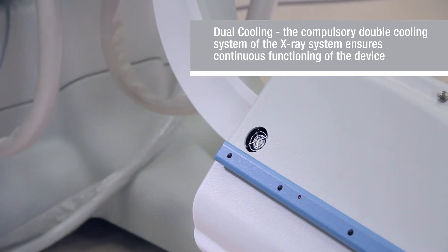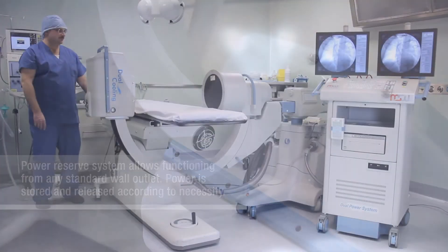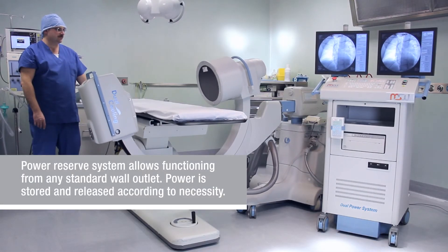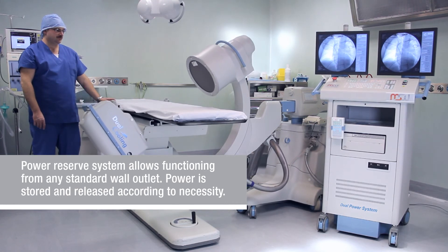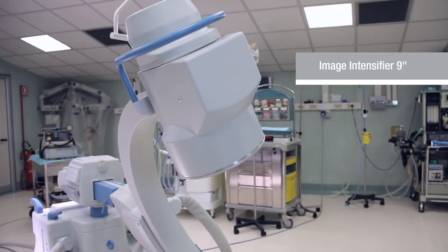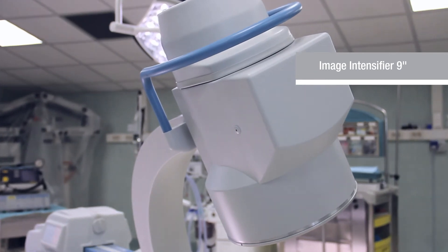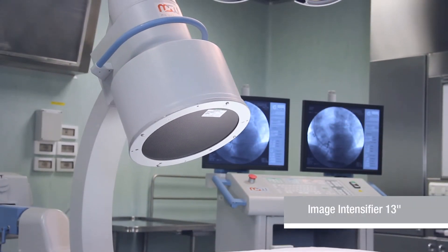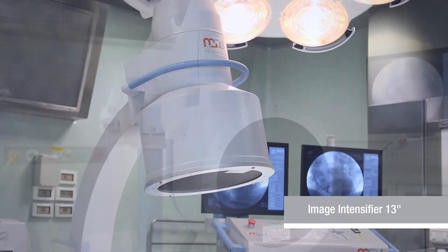A double liquid cooling system ensures the stable work of the X-ray tube. Rechargeable batteries neutralize voltage surges. Apart from a 9 inch image intensifier, there is an option to equip the unit with a 13 inch image intensifier.